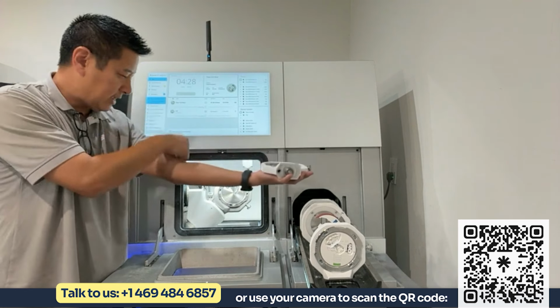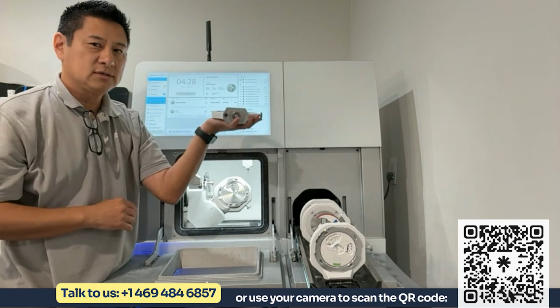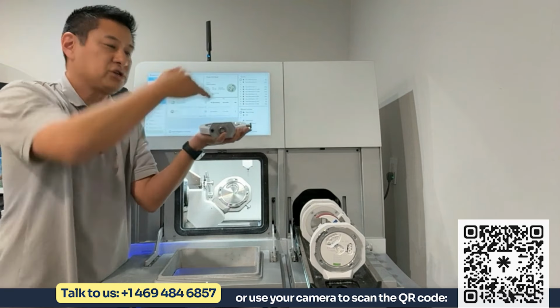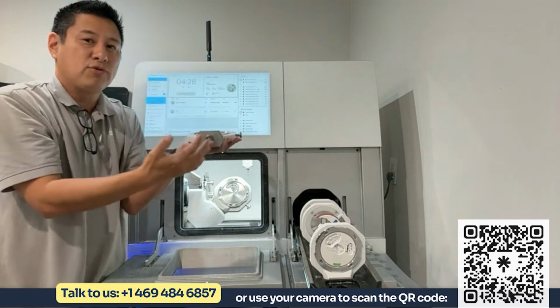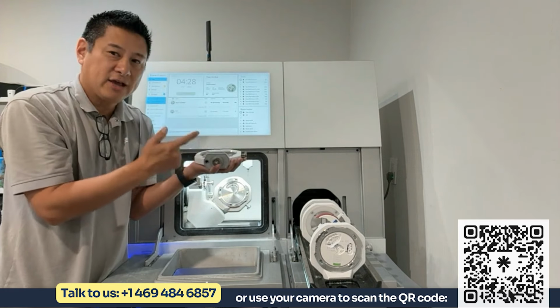And so what we decided on this one is, well, if you're pushing down on here and the load is heavy and there's vibration, what if I do this? If I bend my elbow and now I push here, this is not really putting much load on my shoulder at all, which allows you to push harder and have less vibration, and most importantly, mill faster, right? So what you're trying to do is mill faster, but keeping the accuracy.